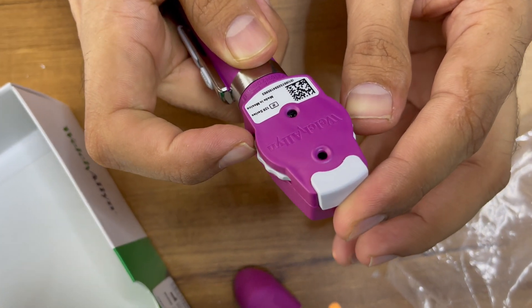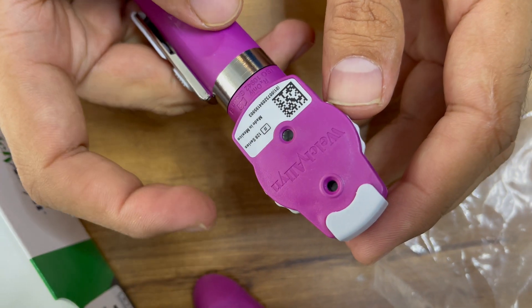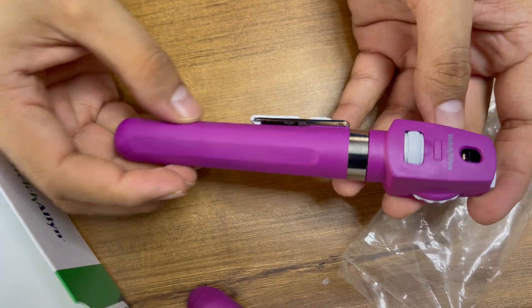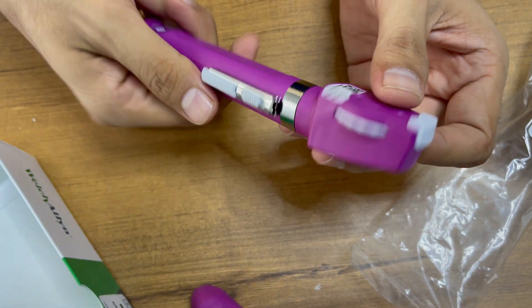Inside this device, the lens range goes from plus 20 to minus 20. You won't be able to see it clearly in this video, but there is a very tiny — yeah, you can see now. This is how the device looks, and it comes with a five-year LED warranty. This is a fantastic device. Thank you.